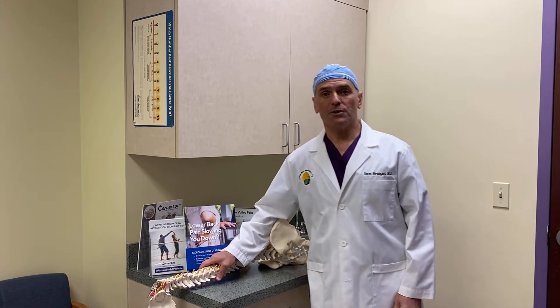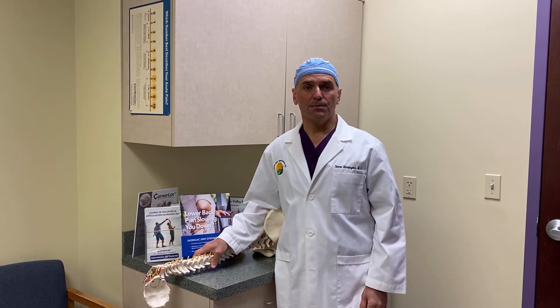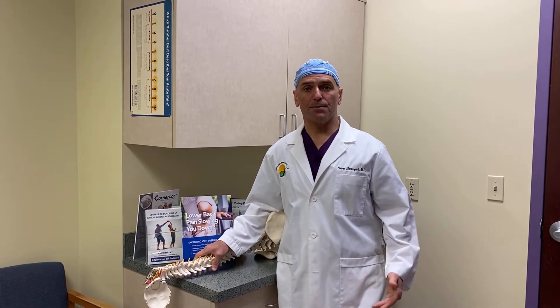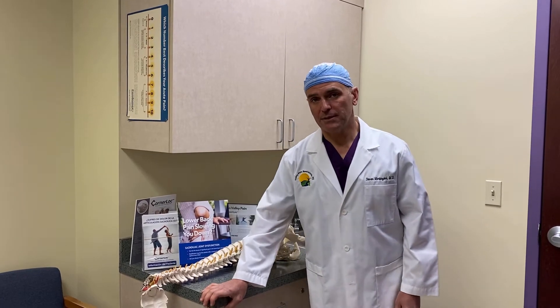We had a patient that was going to undergo this procedure. This is a treatment which is very simple, outpatient, done under local anesthesia, and unlike lateral approaches to the SI joint, this procedure allows weight bearing immediately. Patients report an 80% success rate and satisfaction rate with the procedure as early as immediately after the post-op period. There are very minimal restrictions — patients can drive very soon after, with very minimal lifting restrictions, and can basically resume their normal activities right away.